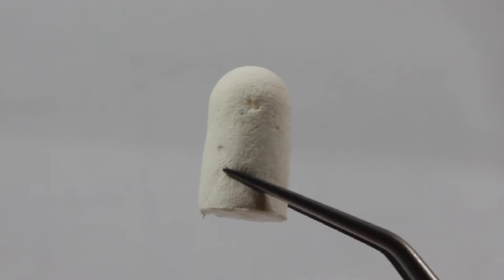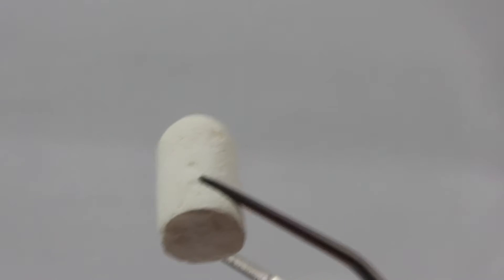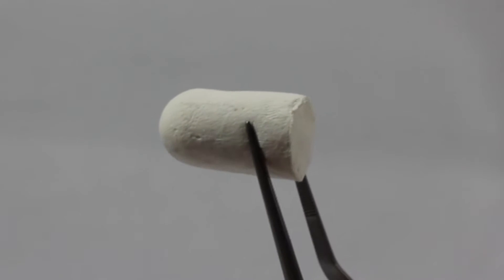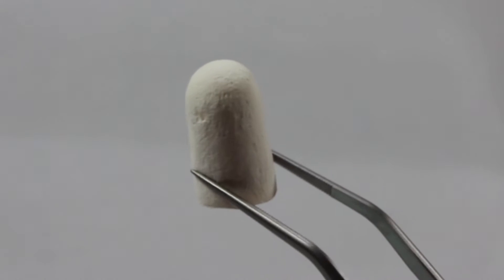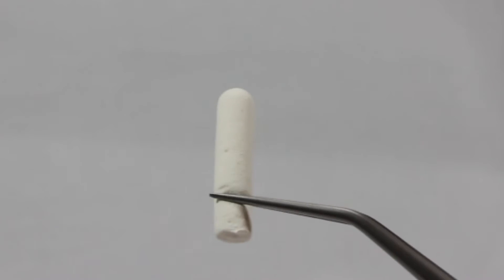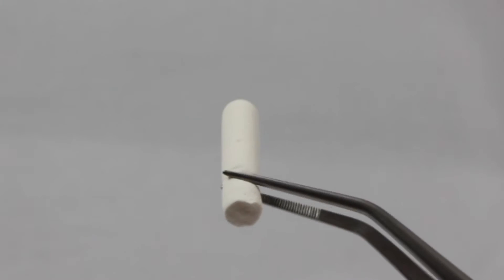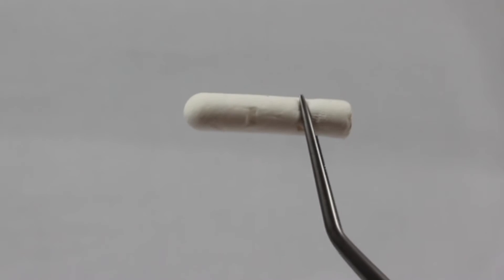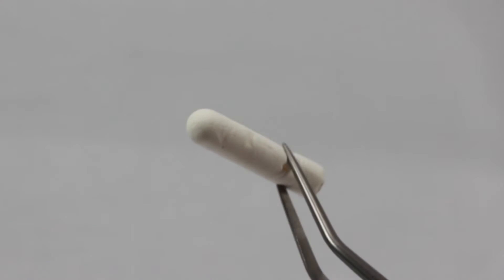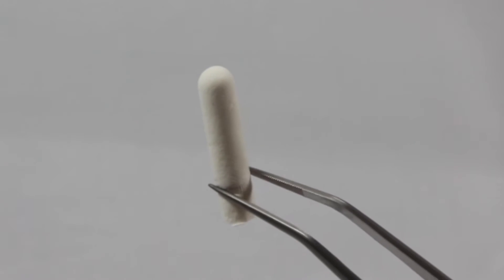The Osteogen Plug is available in two sizes. The large Osteogen Plug is 10 millimeters in diameter by 20 millimeters in length. It is also available in our slim size which is a longer and skinnier version at 6 millimeters in diameter by 25 millimeters in length. Regardless of size, both Osteogen Plugs are only $50 per piece and are sold in boxes of five for $250.